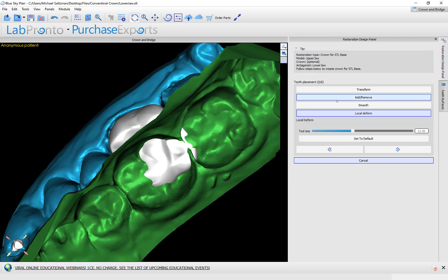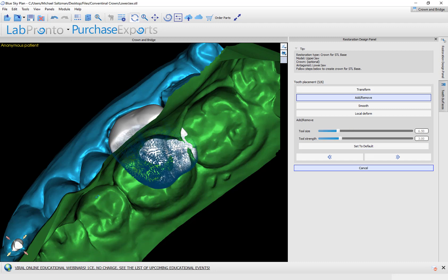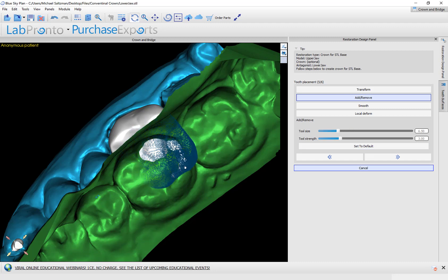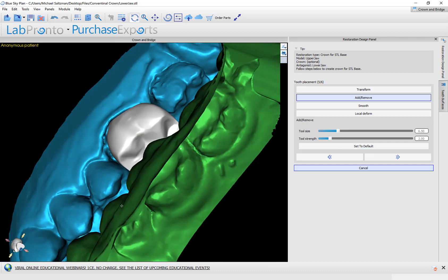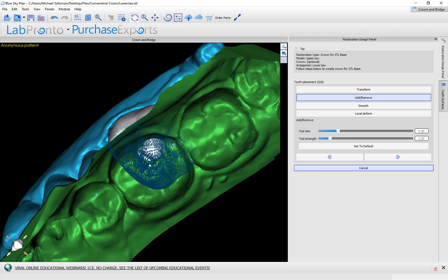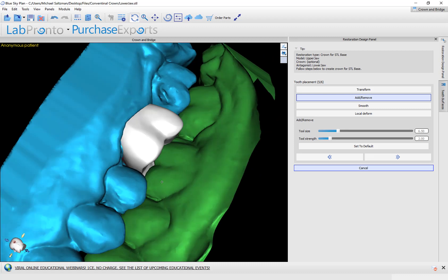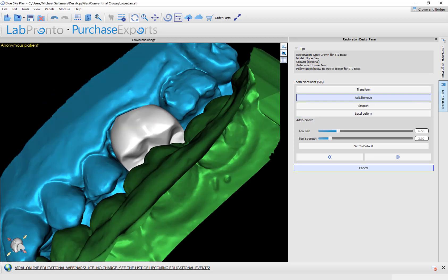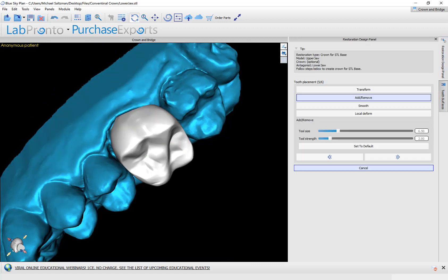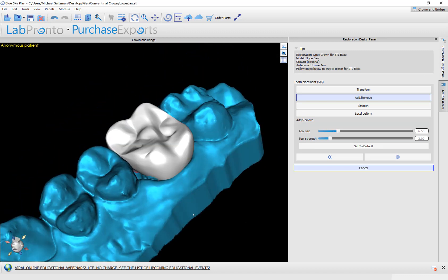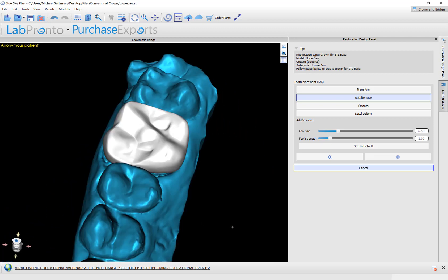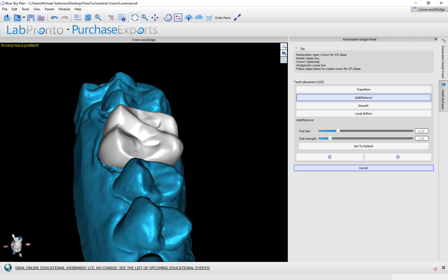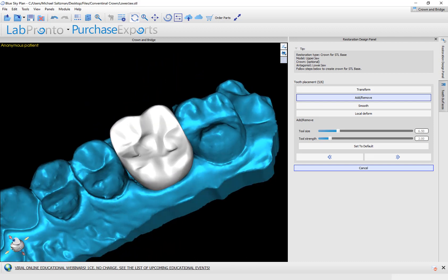So now we could go ahead and use our tools. It gives us a full range of capability of editing the tooth. So what I'm doing now is I'm just holding down the control key on the keyboard, using my left mouse button, and I'm able to kind of shave away slightly at the top of the tooth to reduce the amount of intersection or collision. So using our surfaces and our different editing tools and the tool size and the tool strength, we could really go ahead and edit and design and create the tooth exactly how we want it to be.